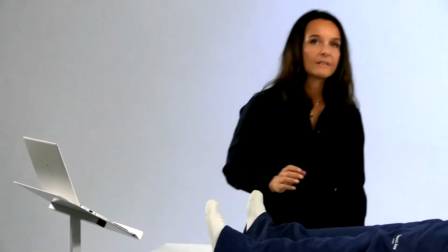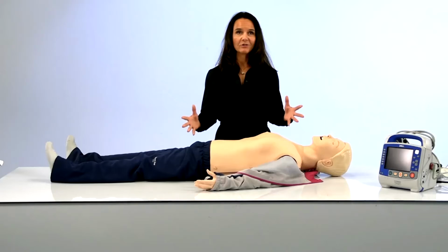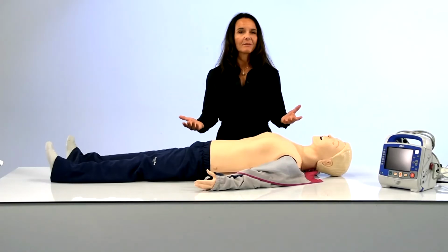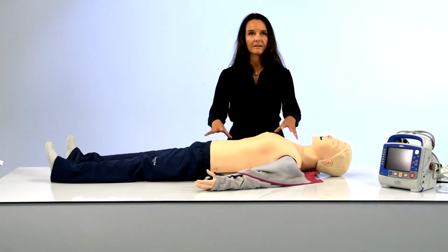This app is currently in beta for Windows, and we are looking for beta testers for it. So if you would like to be a beta tester and work with me and my development team, please contact us. Currently, you need to have the latest generation Resusci mannequin, being the Bluetooth Low Energy version. But we will also develop the cabled USB connection to previous generation mannequins.